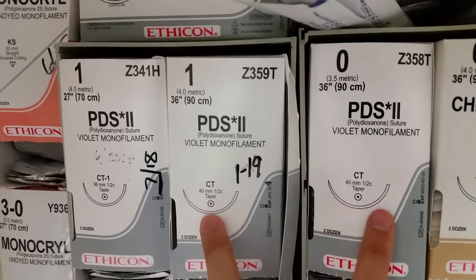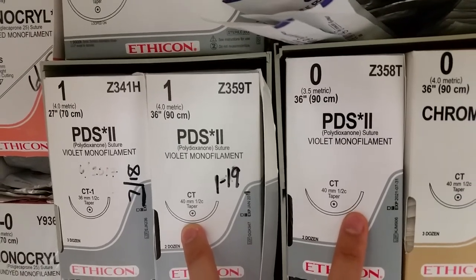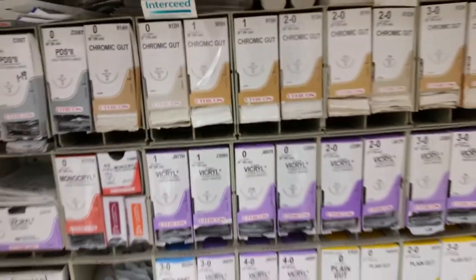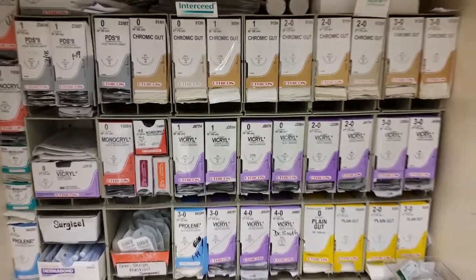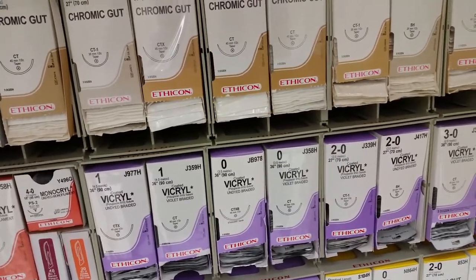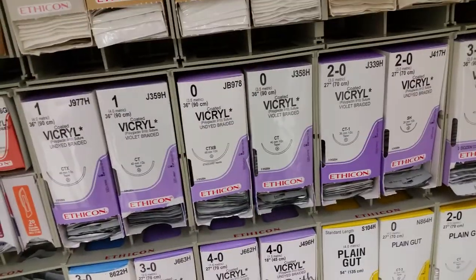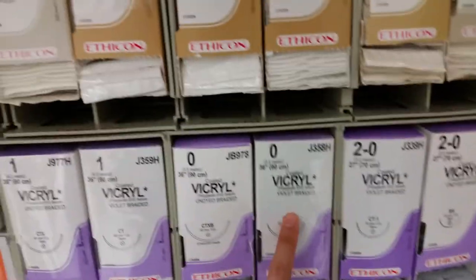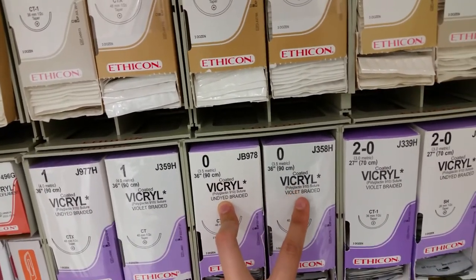CT is the same as this needle right here. Whenever a surgeon asks for a suture they'll say, 'I'll take a zero vicryl.' If you know your sutures, you just ask: 'Doc, do you want a CT, CT1, or CT2?' They say, 'I'll take a CT,' so it'll be this one — zero vicryl CT. As for dyed or undyed, that's surgeon's preference — if you know your surgeon doesn't like dyed, you should already know that.